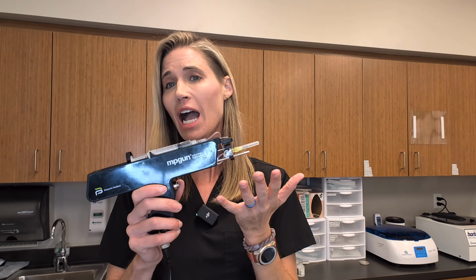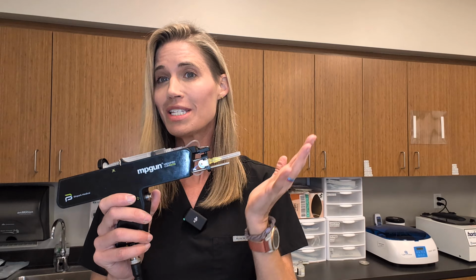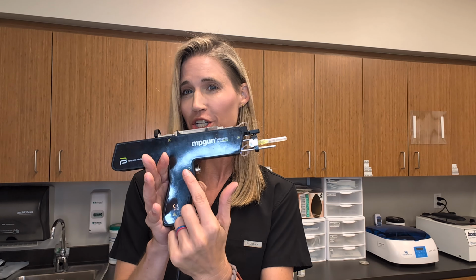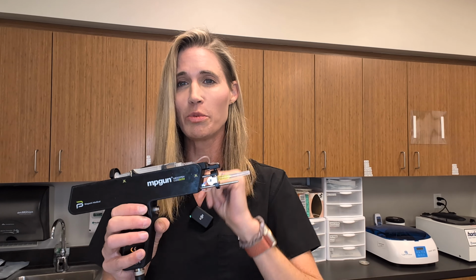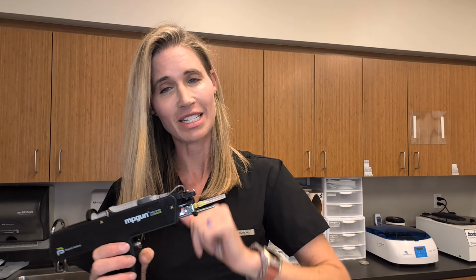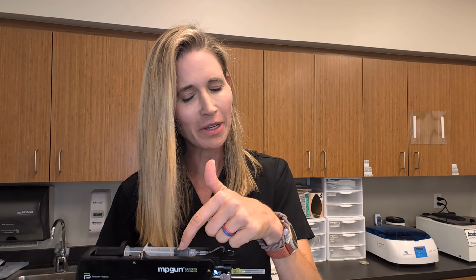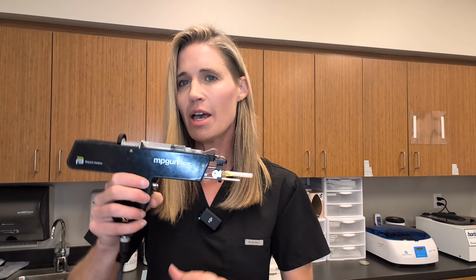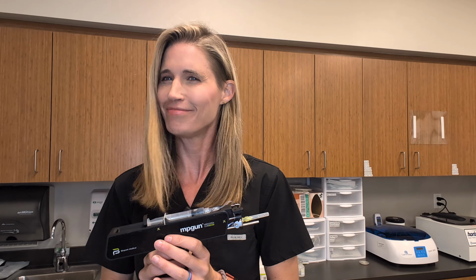Caution, red flags, red flags. When you are out of fluid in your syringe, you will hear a single beep. Do not ignore that beep. You must then adjust your press to 0 at this point to avoid making your device very angry. If you don't change your press to 0, you will get error messages, you'll have to restart the whole thing, and you will not be happy about it. So listen to the beep, pay attention, and then just change your press to zero, and you can continue to needle, but you just won't be injecting fluid at that point. Make sense?